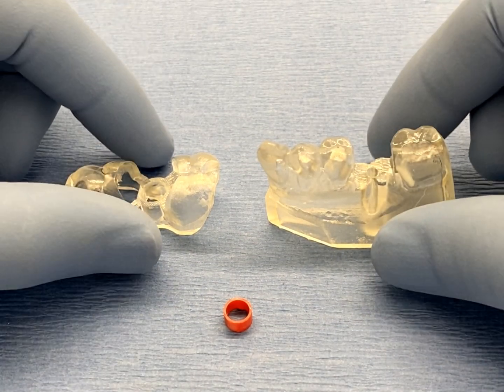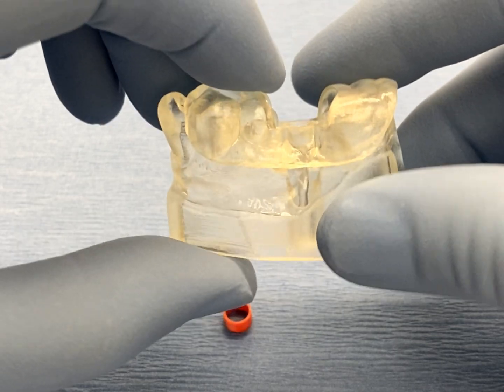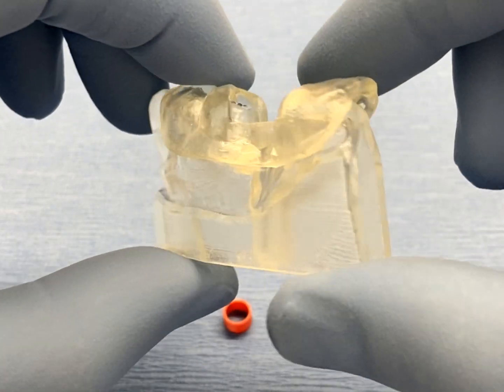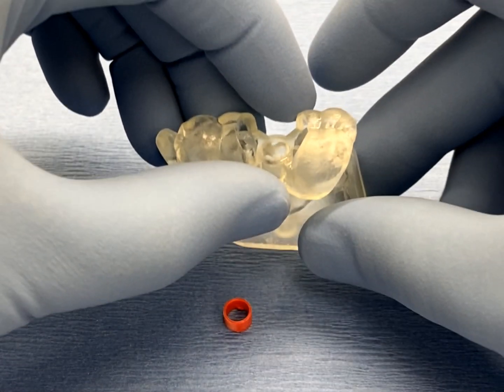Once the virtually designed surgical guide has been 3D printed and trimmed, confirm the fit and function by placing the surgical guide onto the 3D printed GRS surgical model.